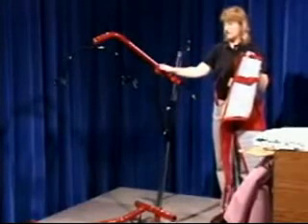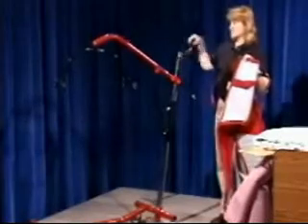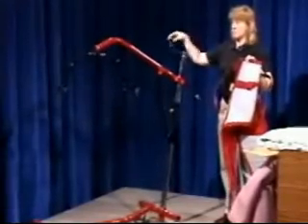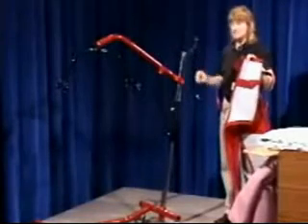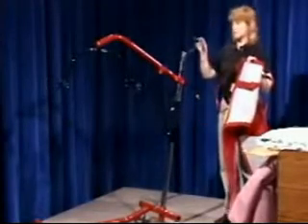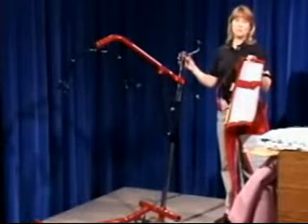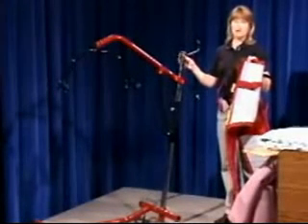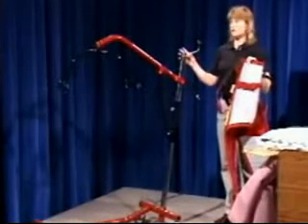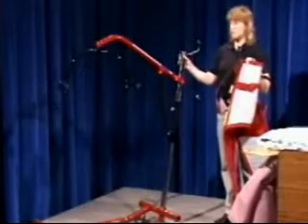Just so you're aware of what some of these look like, this is called a Hoyer lift. This one basically uses a hydraulic action to raise and lower the patient. Sometimes it's a pump, and then you have a valve that you release to slowly lower them to the next surface. There are various types of mechanical lifts, and when you work in a facility, you'll need to become aware of which type of lift they use the most, and make sure that you're trained in that lift and that you're comfortable using it before you attempt to use it with a patient.